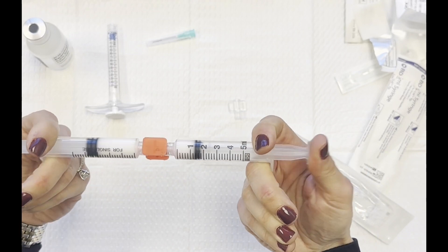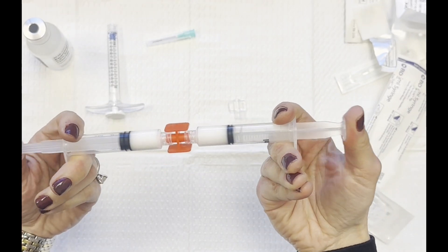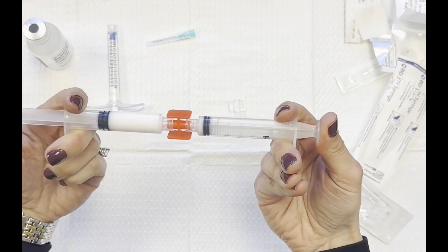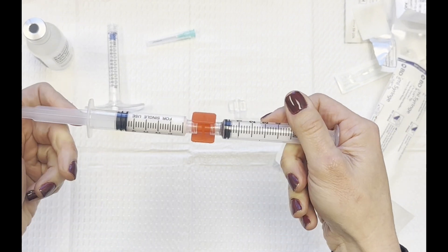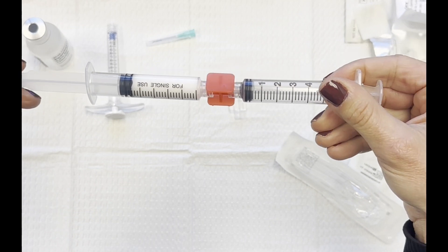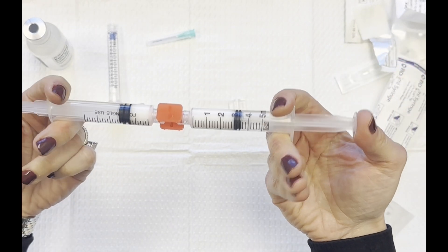It feels just like this soft, mushy pudding when it's all blended nicely. So at least 20 passes is what I do, and then you have your blended and mixed product. Again, this is a 1 to 2 ratio of Radiesse and normal saline. Hope that helps.